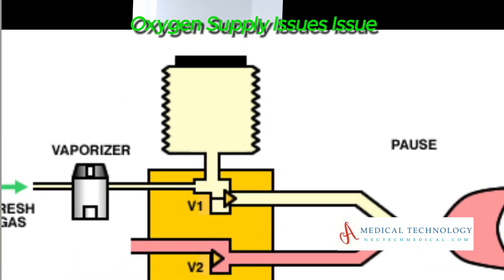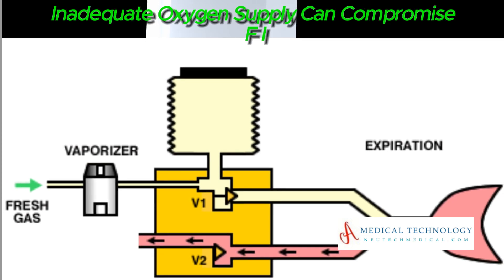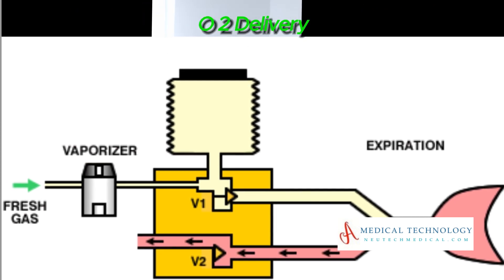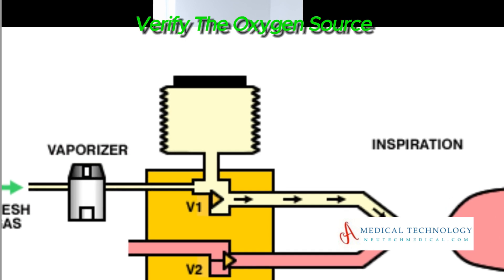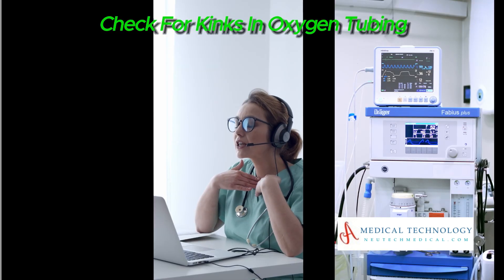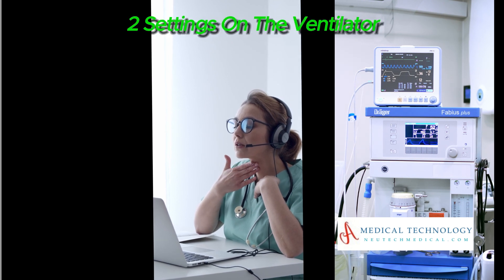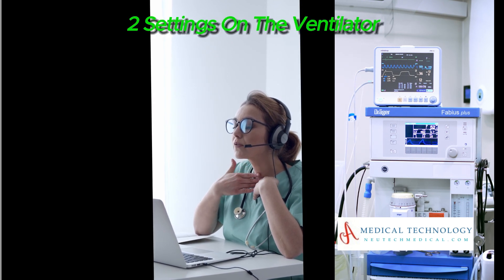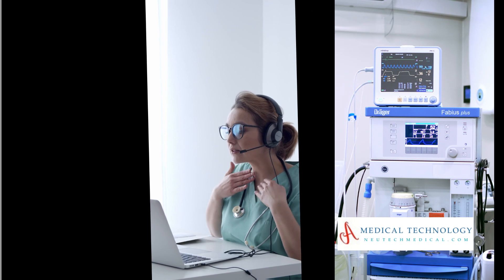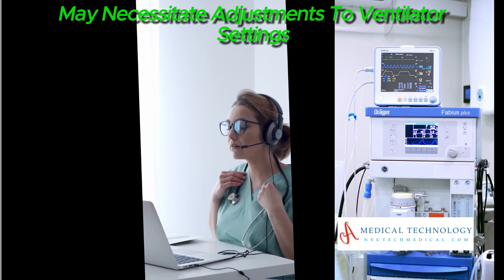Oxygen Supply Issues — Issue: Inadequate oxygen supply can compromise FiO2 delivery. Troubleshooting: Verify the oxygen source, check for kinks in oxygen tubing, and confirm the FiO2 settings on the ventilator.